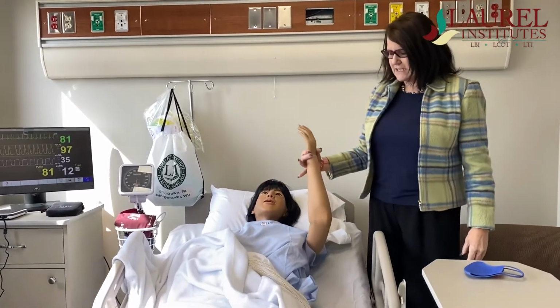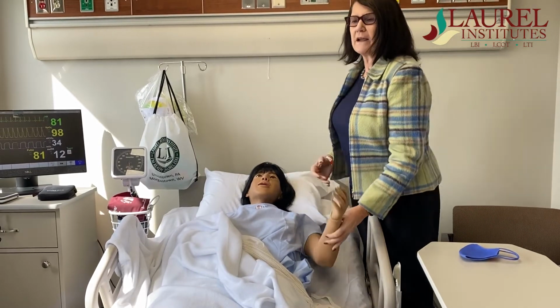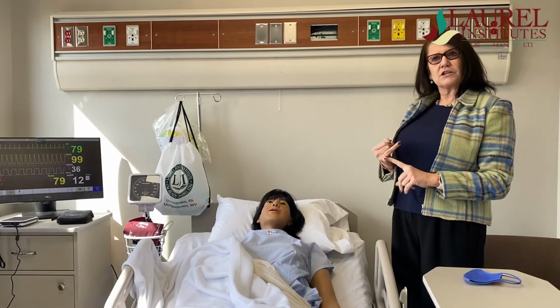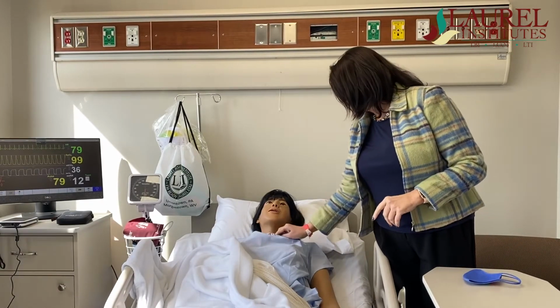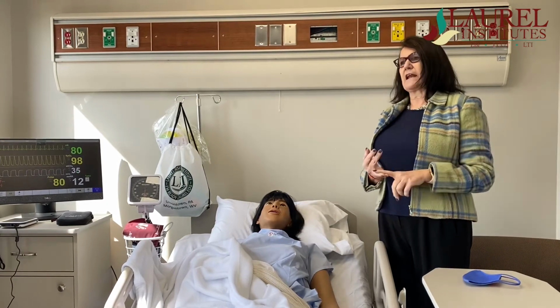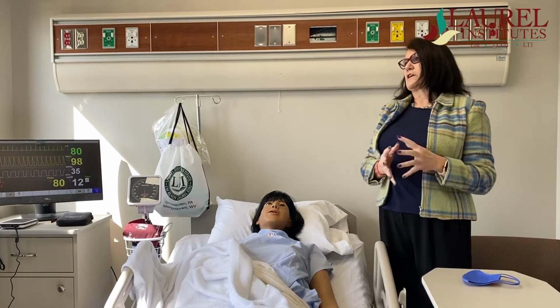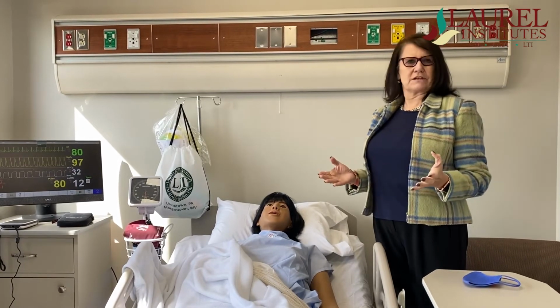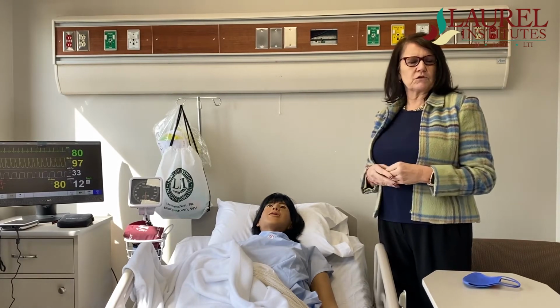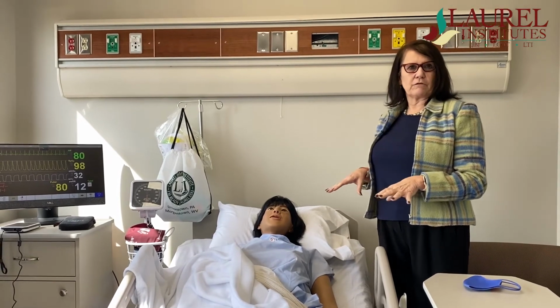Annie is designed to be as close to a human as can be. Her joints articulate and are just like ours. She weighs the same as a human would weigh. Tubes can be put in her, NG tubes. She can be trached, and we can put a trach in her and use trach suctioning. She can have a stoma. She can have a Foley placed in her. She can have suppositories given to her. So you can simulate the experience that students would have in the hospital. This makes it a very safe environment for students to learn from.